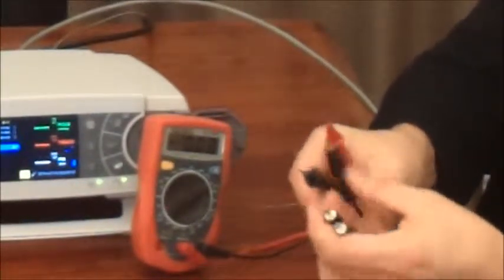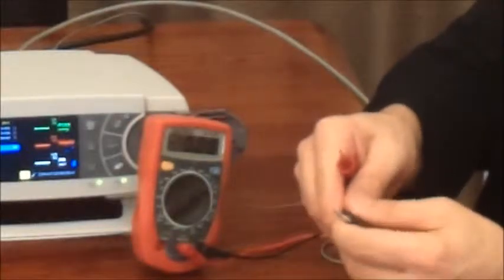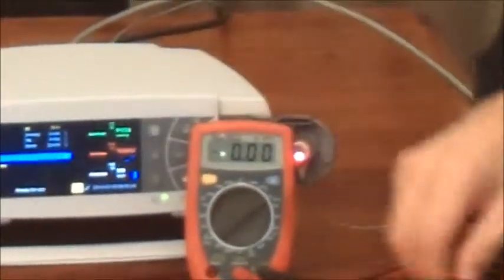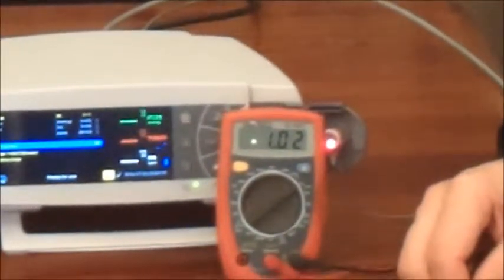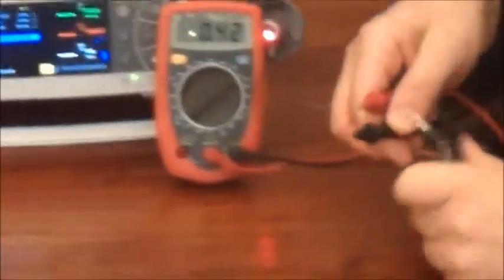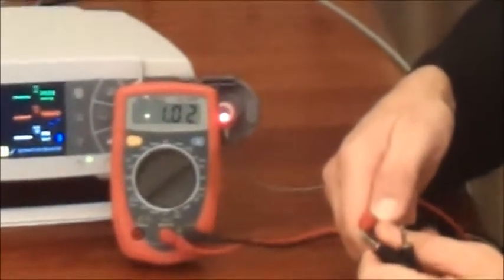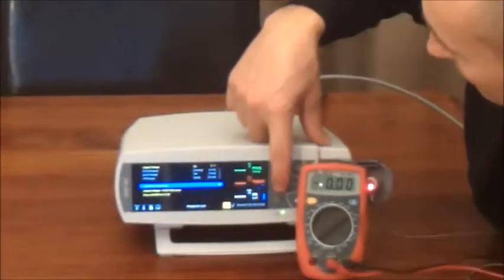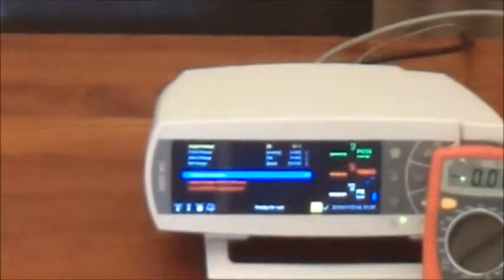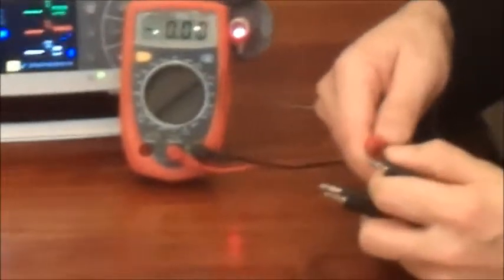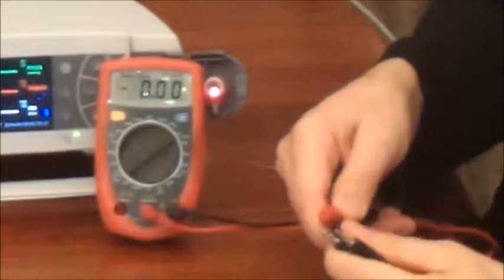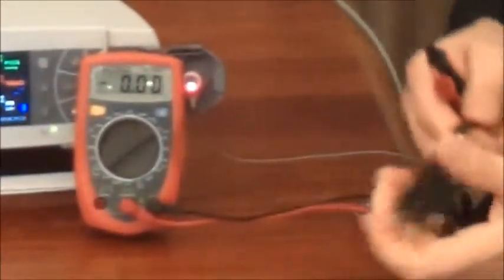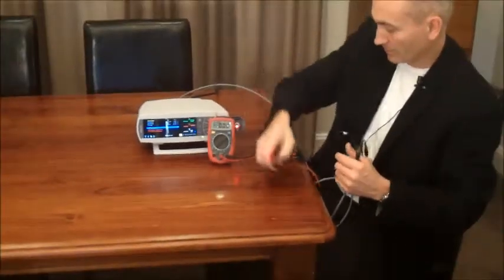We're going to have a look at the signals these are producing. Let's choose the CO2. It's not going to make any difference; they're all going to be the same at one volt. That's reading 1.02 volts, which is exactly what the other ones are reading. So there's your upper level calibration point for the interface. If I push enter or just wait for 60 seconds—60 seconds has transpired now so it's gone to zero volts—and we measure them again we find 0.01 volts. That's your lower level for calibration on your polysomnography software.